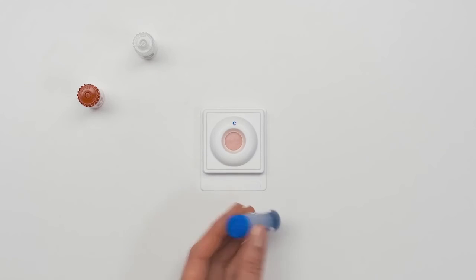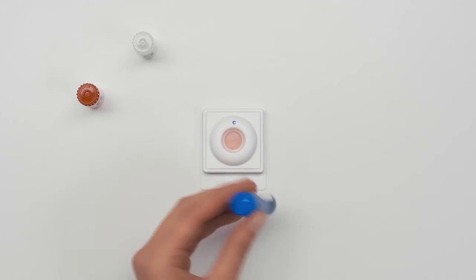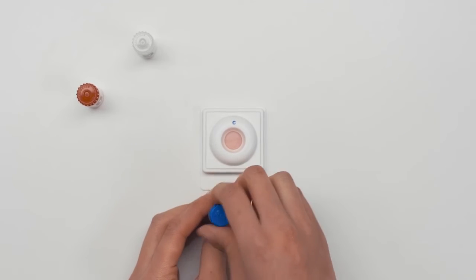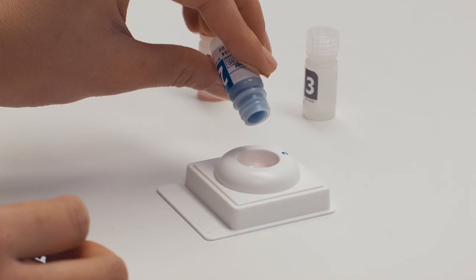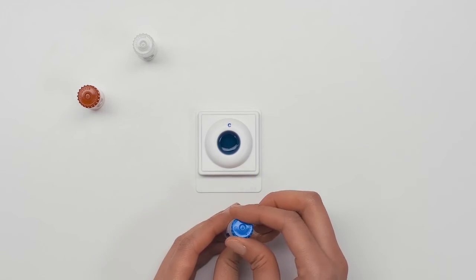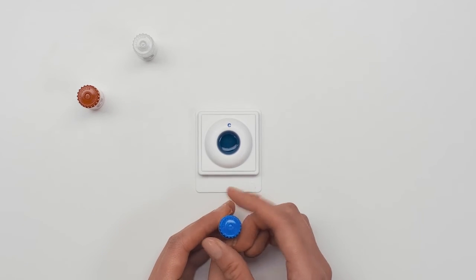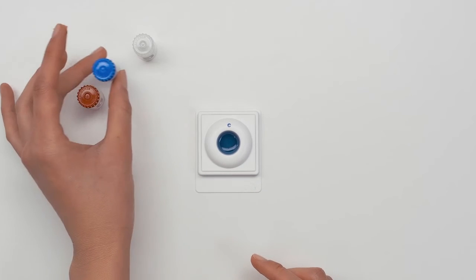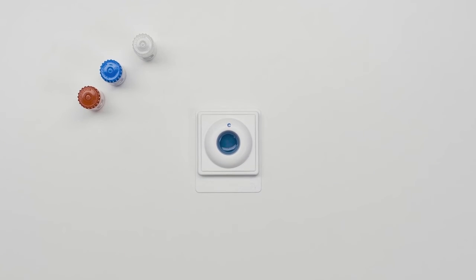Shake bottle 2 four times and pour all of the liquid into the test device. You may need to gently tap bottle 2 to get all the liquid out. Wait until the liquid disappears.